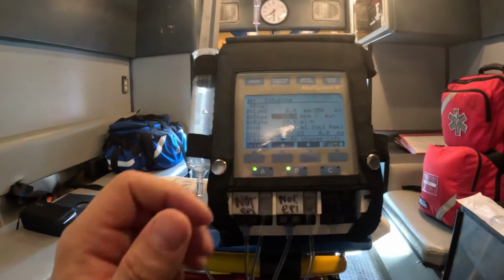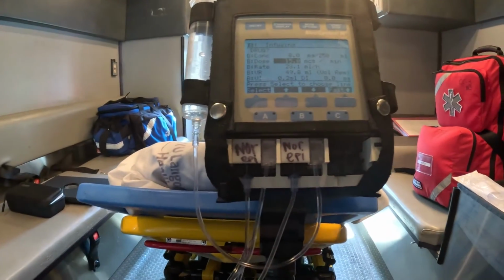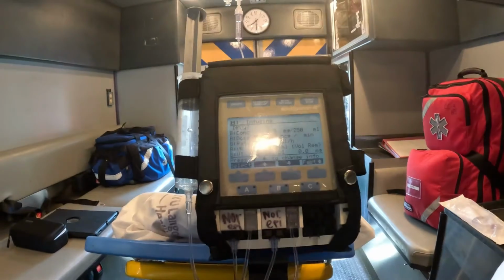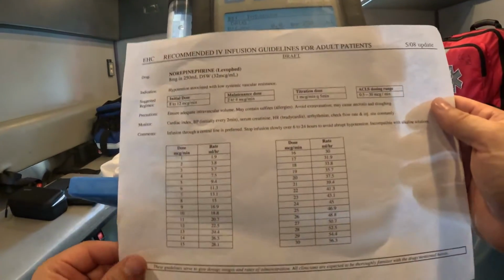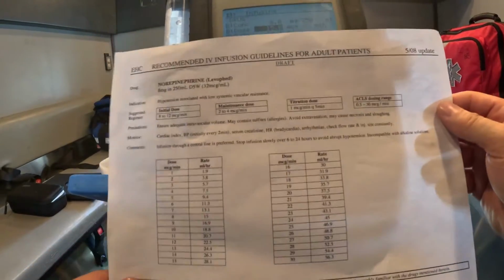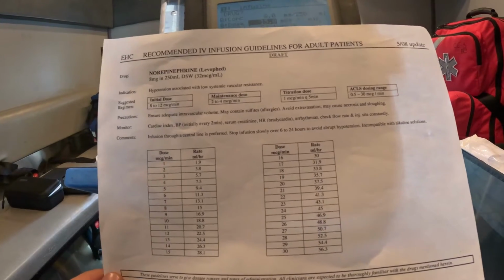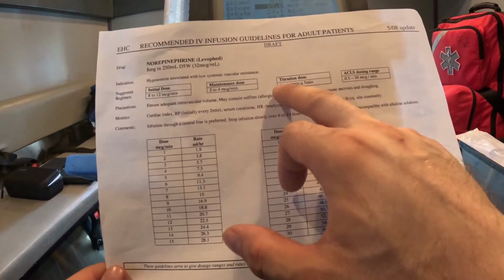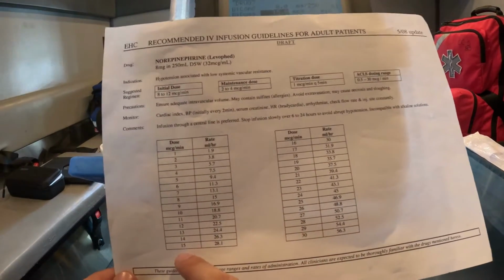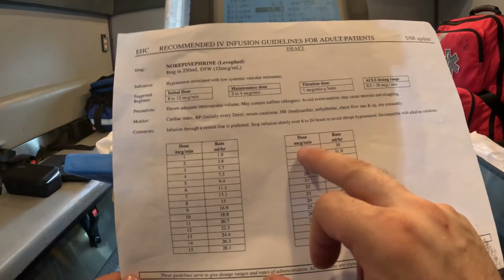So again, the benefit of this mode, as I said, let's say I'm doing my transport and I know, based on this drip sheet and the doctor's orders, the doctor has informed me that if during transport the patient's vitals and hemodynamic status decompensate, that his MAP drops to less than 65 and I want to keep the MAP at 65, my next titration dose is 1 mic up. So I was infusing at 15 mics a minute. The next one I have to go at 16, right?